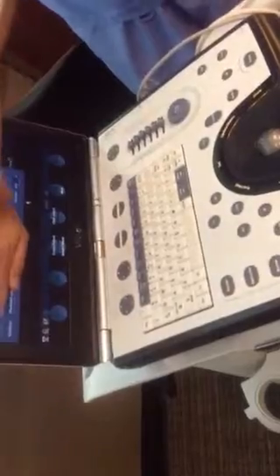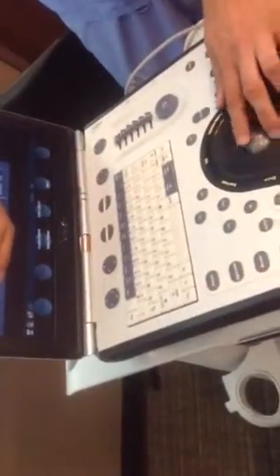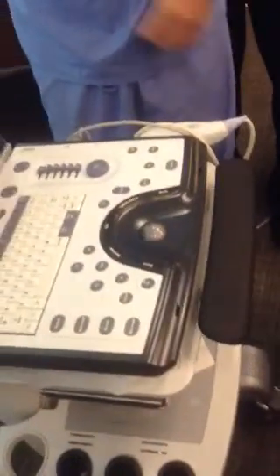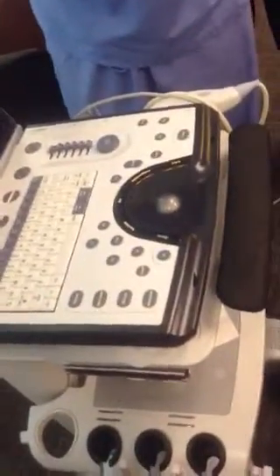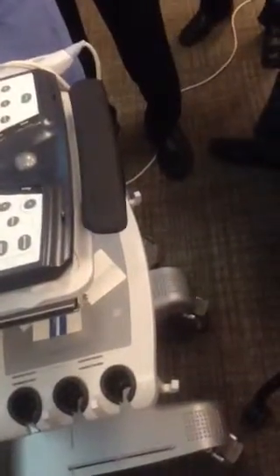All right. Now there's a query button here. We're going to query, and you have to have this plugged into the network. So this has to be plugged into a network cable down in the Echo lab for this to work. And you query it, and that'll bring your patient up. And then from there, you select your patient. There's a select patient right here, and once you select it, you're going to be able to start your exam. Okay? So I'm going to just go ahead and put in a test here so we can move on.